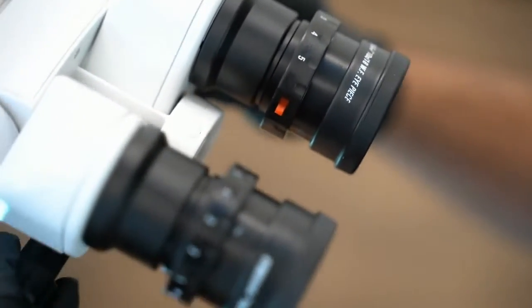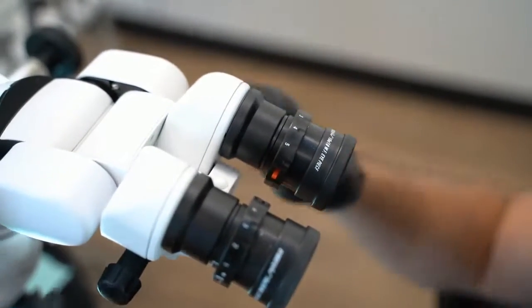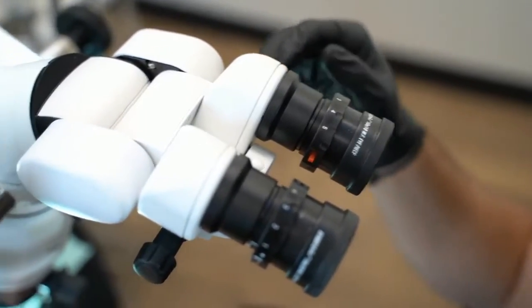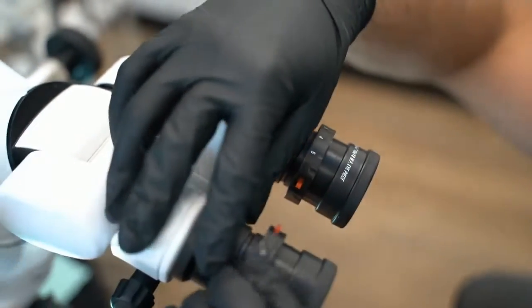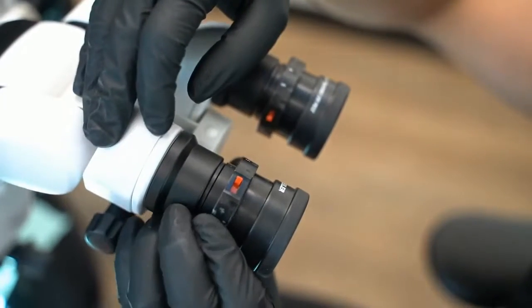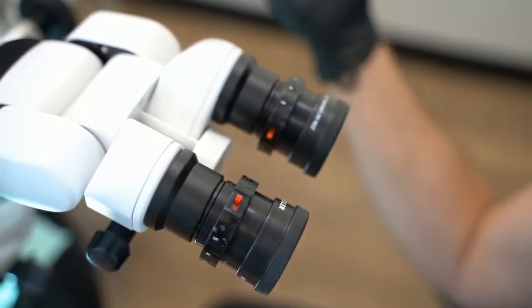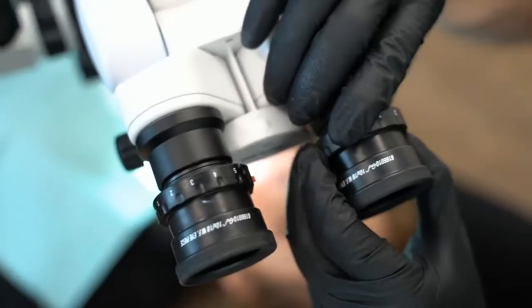interpupillary distance. The nice thing about these little details is it's very easy to sit in your cockpit and just dial yourself in. It just takes a matter of seconds, so you can get your corrections set. This particular eyepiece set can actually lock your correction in, like so, and lock into place. So if you aren't sharing an operatory, you can just dial this into your liking, which I will do back. Get those things dialed in.